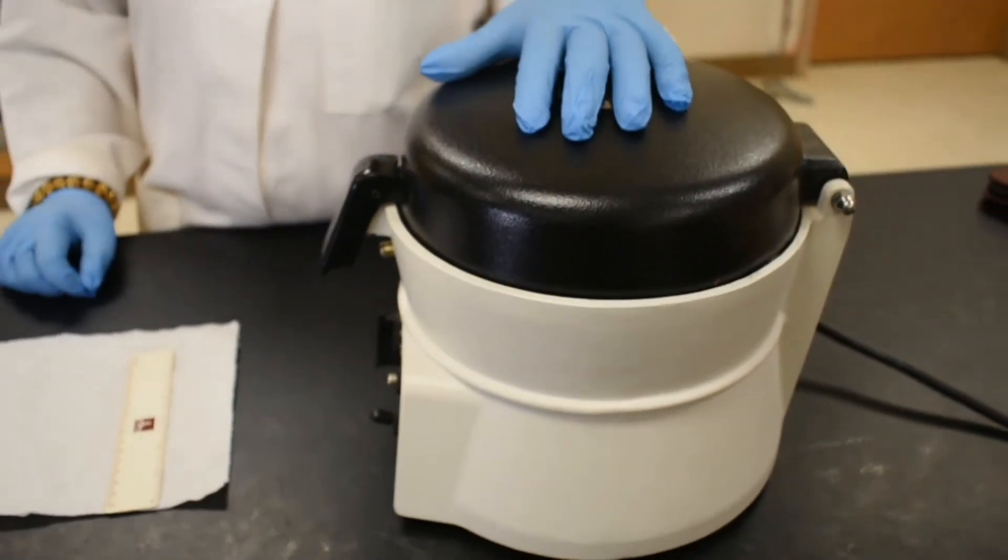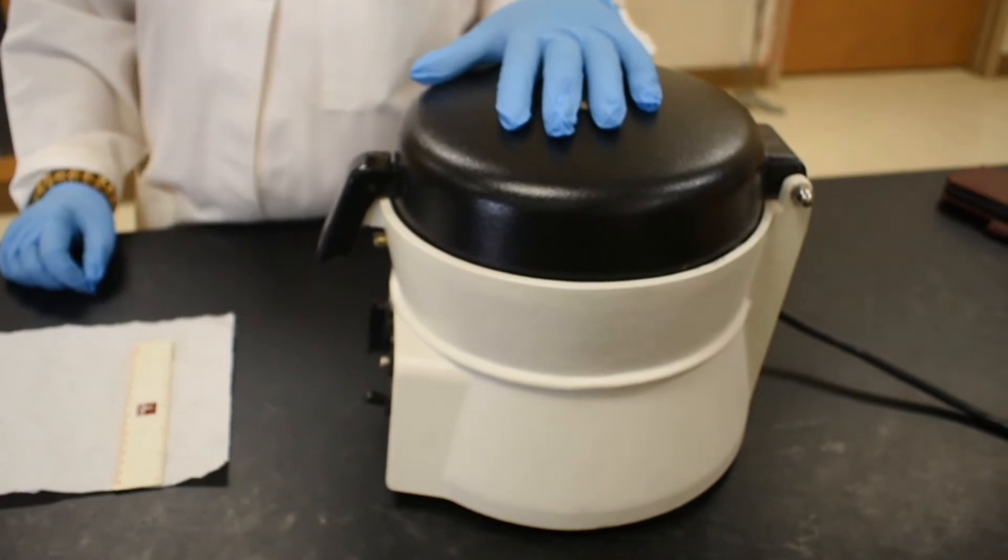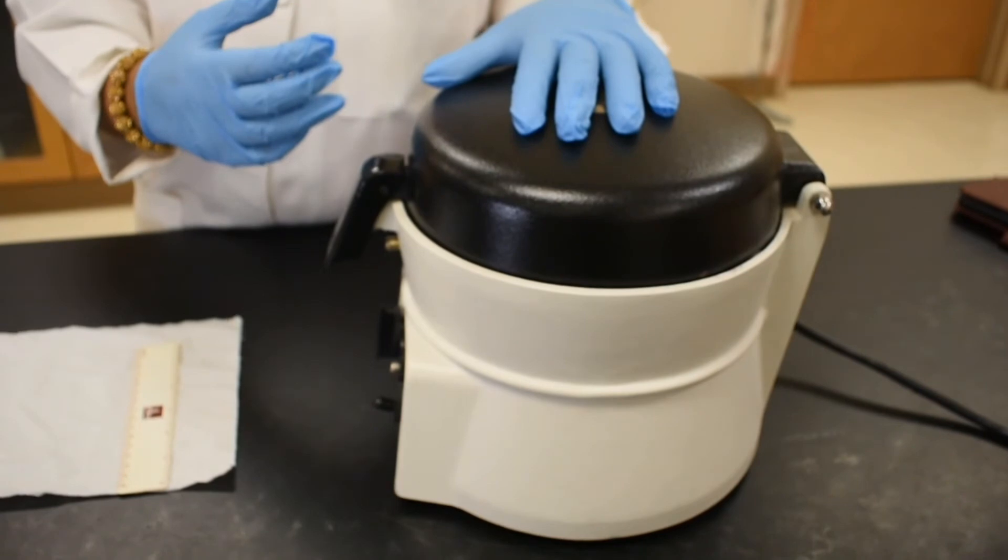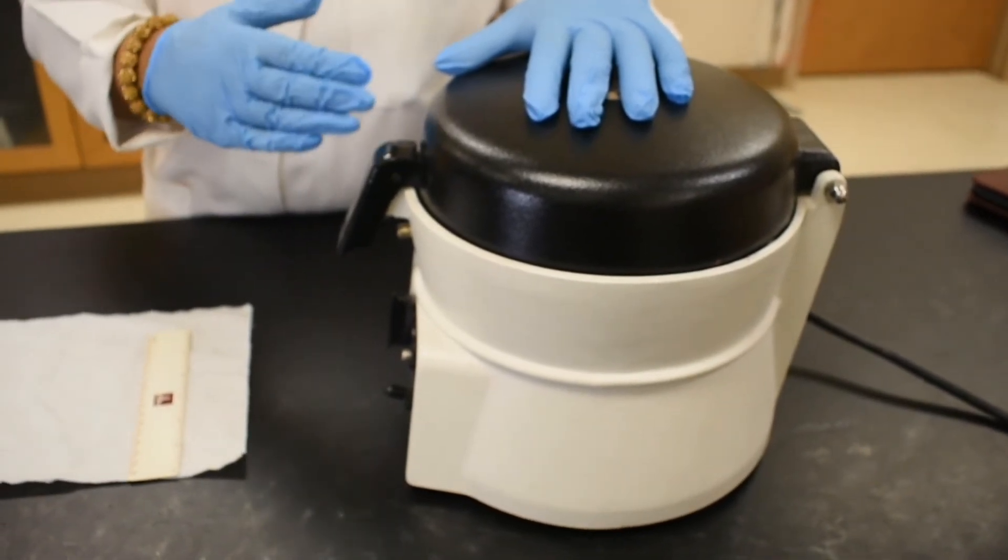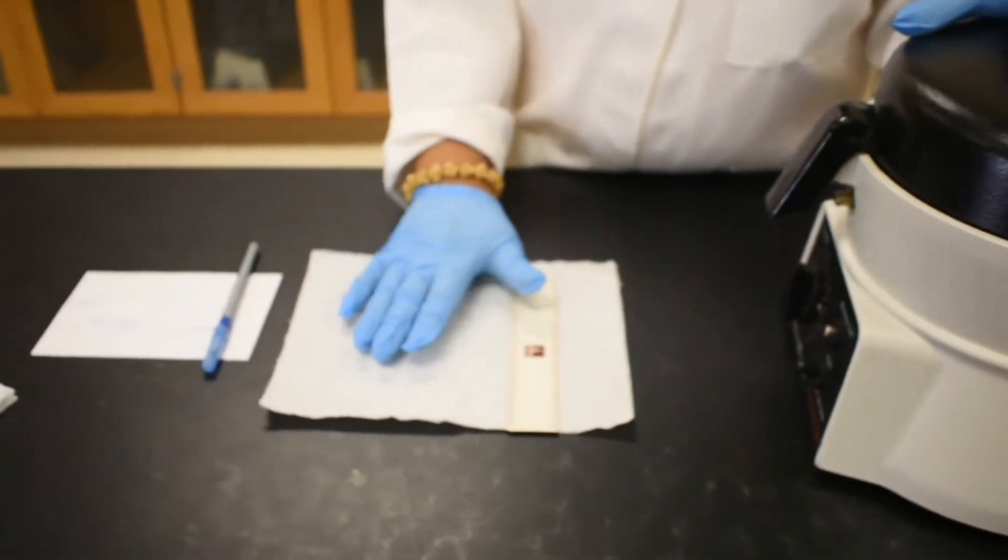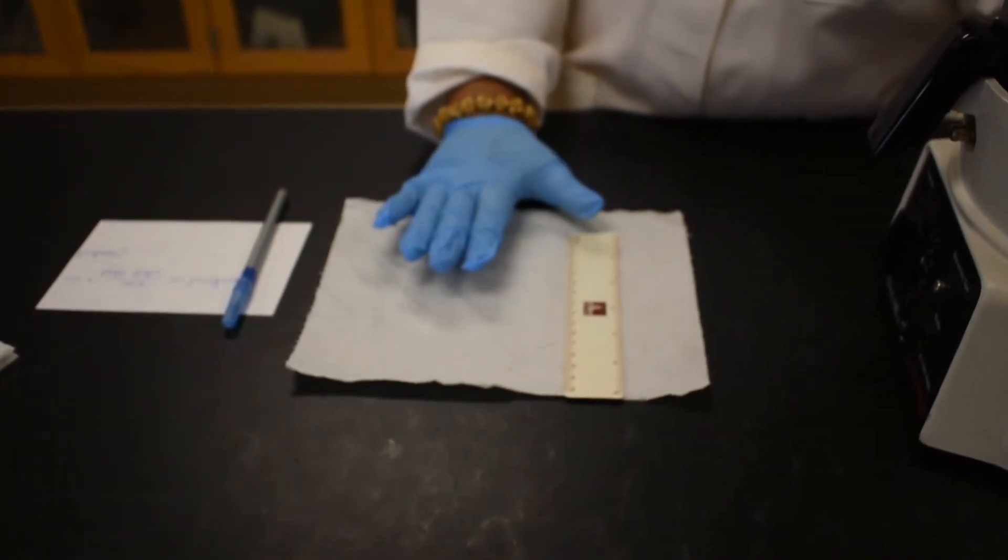Five minutes is over. Centrifuge is done. I will take those capillary tubes out for measurement. In the meantime, when the centrifuge was running, what I did was some cleaning. I put the blood samples away.